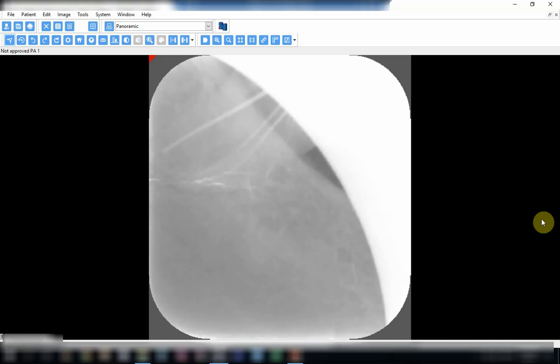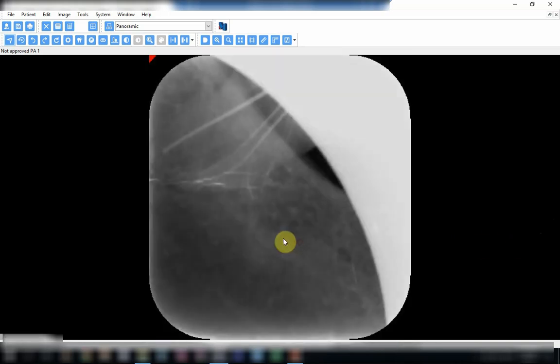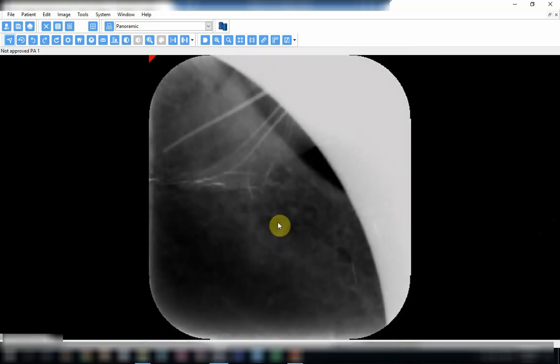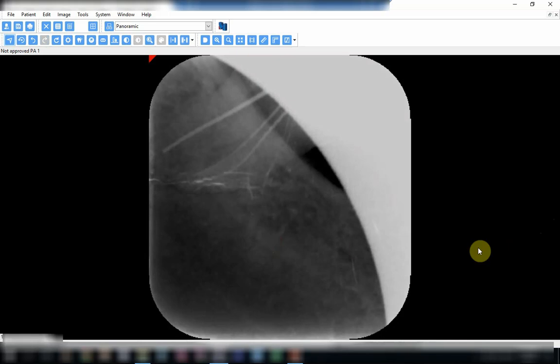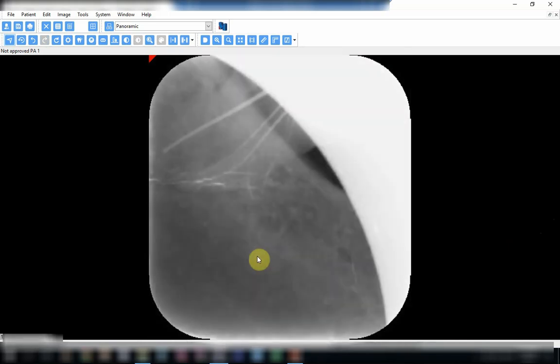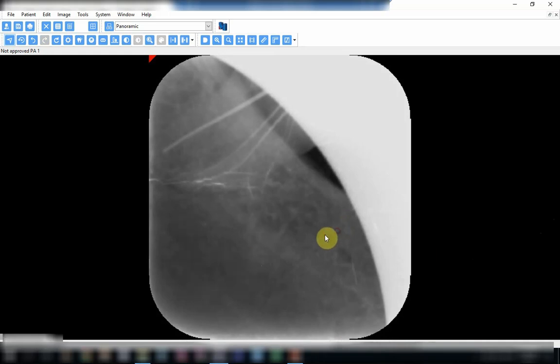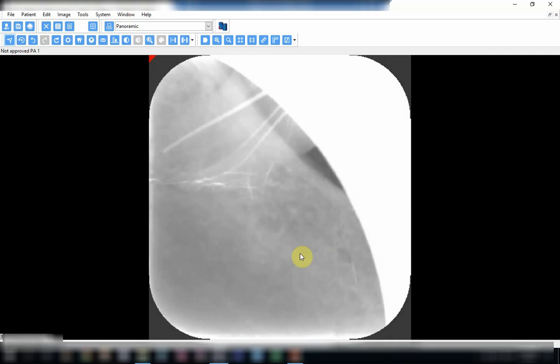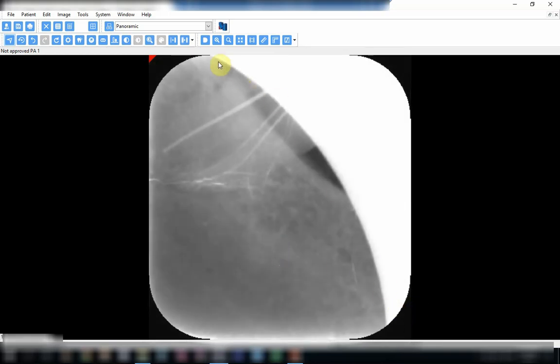Sometimes you need the whole tooth, and with digital imaging you can increase or decrease the density and contrast, but of course this is to a limit. If the exposure was so low, then you cannot do anything. So this image was underexposed and had a severe cut, so the whole crown of the tooth was cut off.